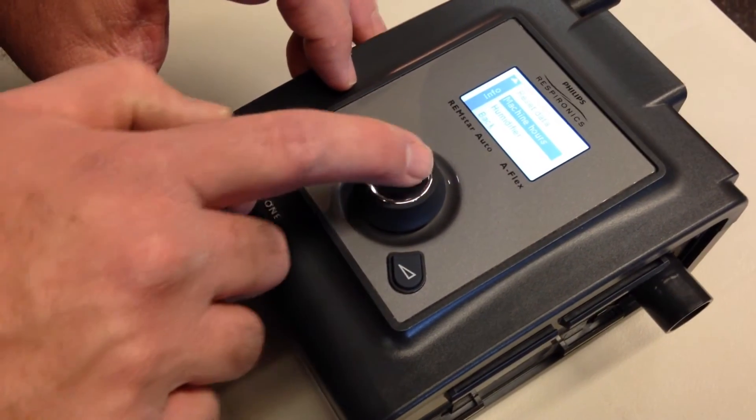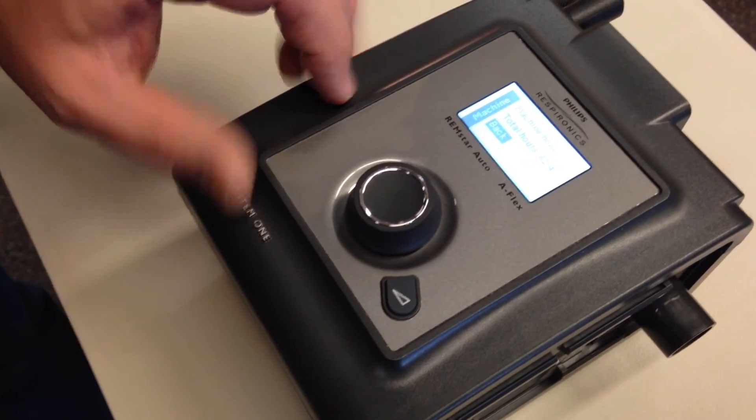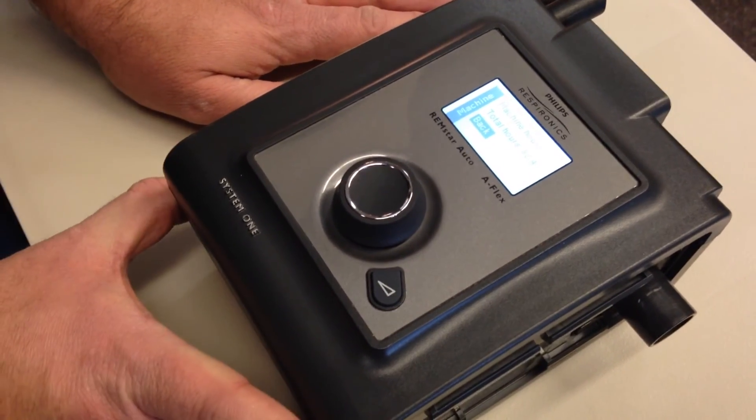Once you select machine hours, click the button, and it'll show you the total hours. That is the total machine hours.